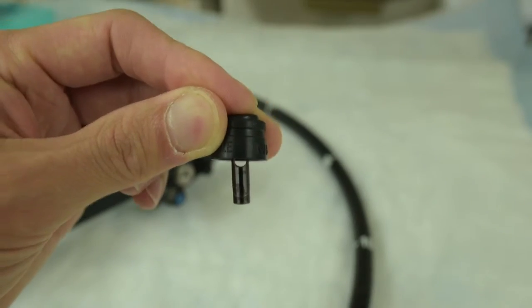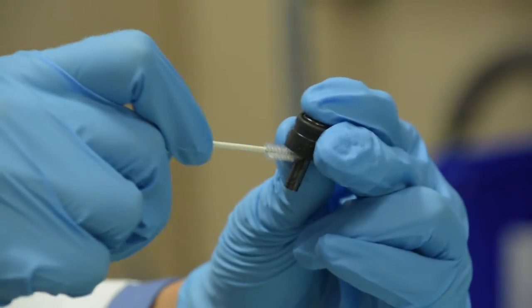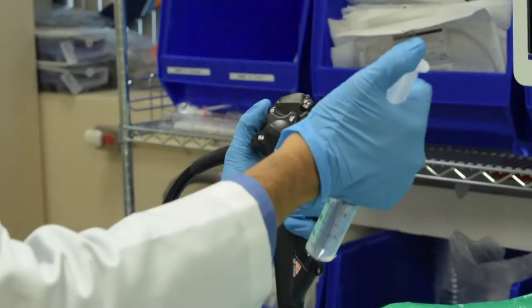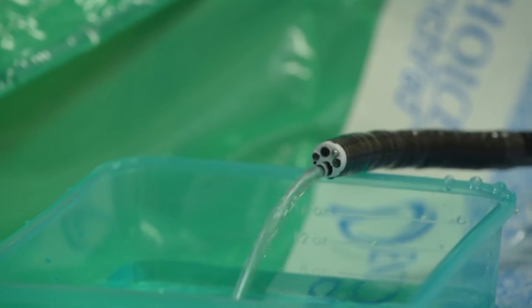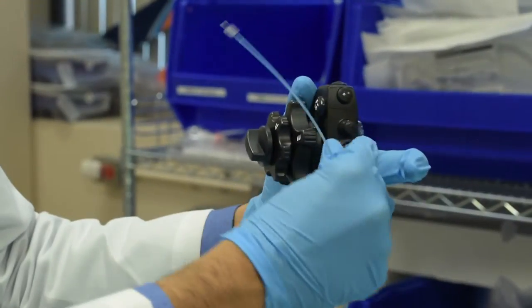We talk extensively about the suction biopsy channel, as this is where most problems occur during an endoscopy. We talk about the wall suction and troubleshooting those issues.